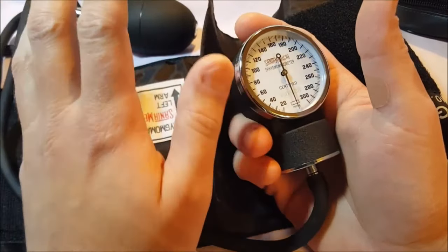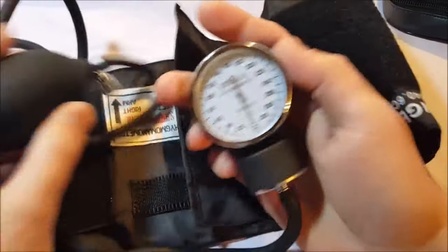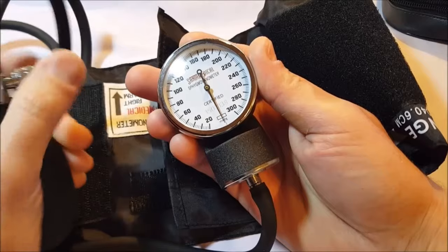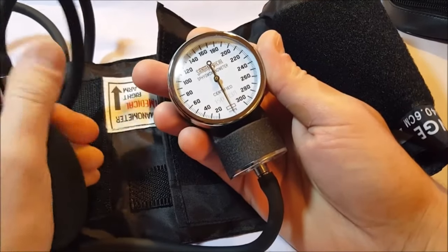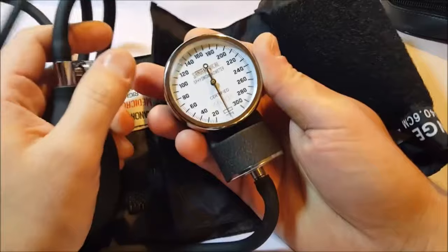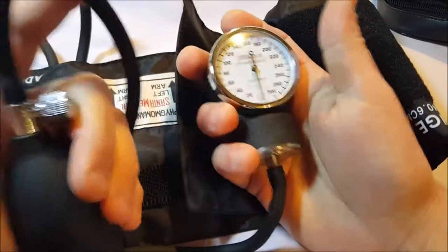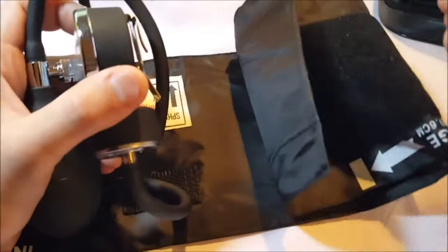This is a two-tube adult-sized PVC bladder. Standard PV-type bulb we have going there. It does seem well made. I'm going to have to test this and we'll do some comparisons against another one that we do have in the house.